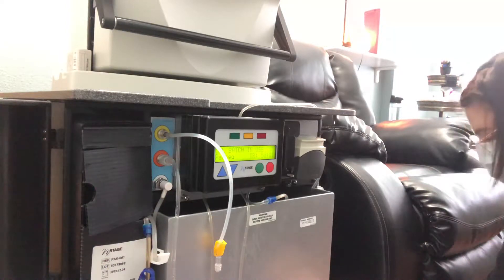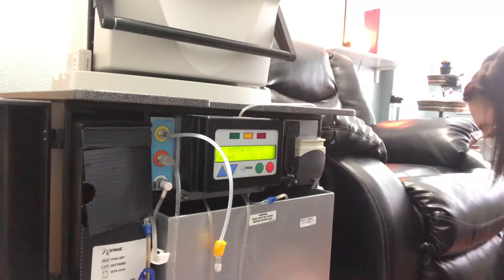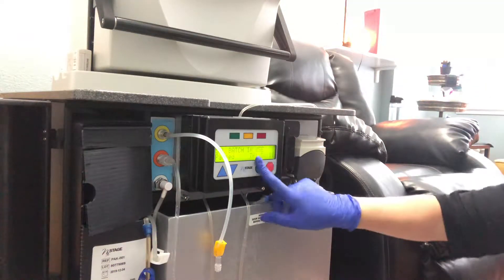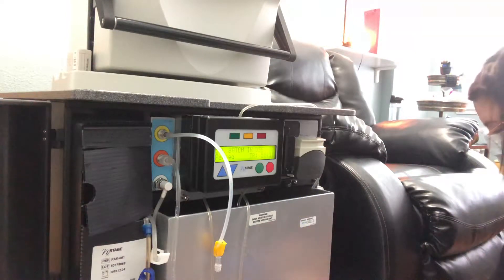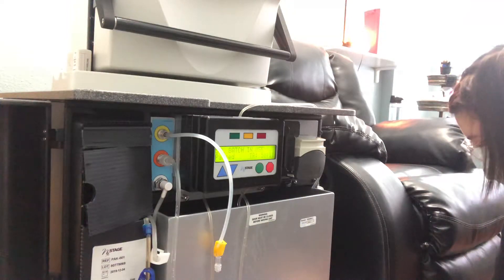Okay, so now as the pump is stopped, you're going to press stop on the pure flow and now it's going to say pause. Leave it in this mode until you are ready to collect the sample.